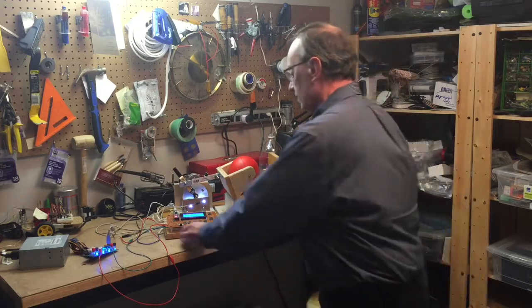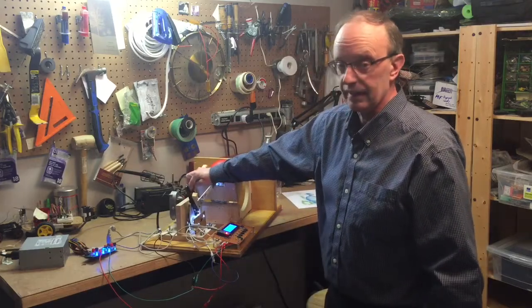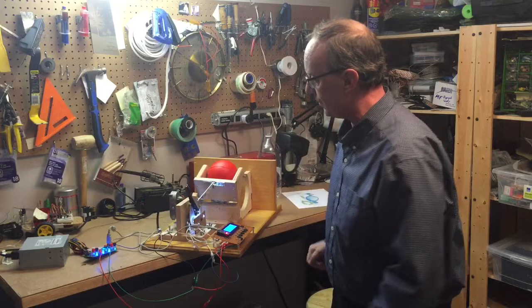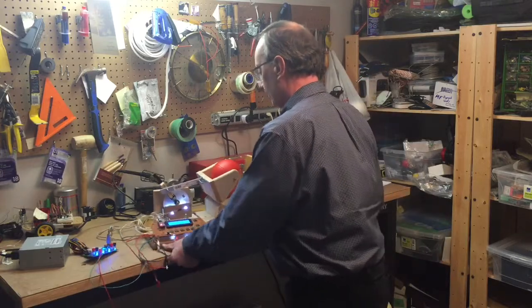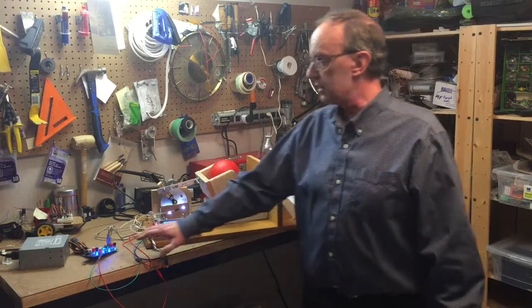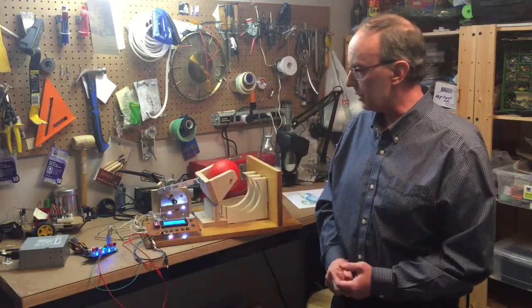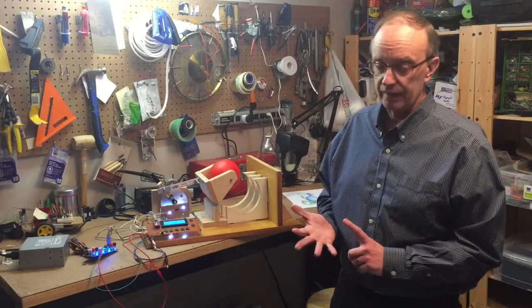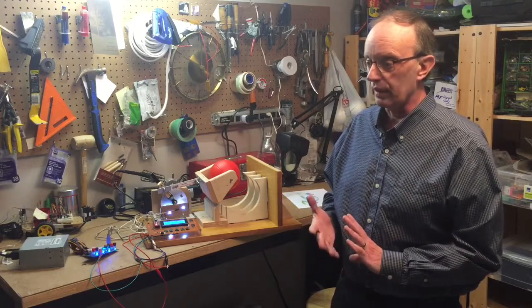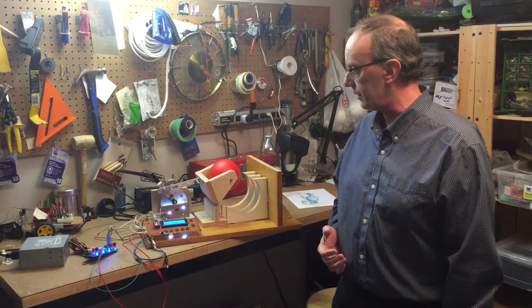The main part of this ventilator is the windshield wiper motor, which can be found pretty well free in any junkyard or purchased very inexpensively, and it uses an Arduino with a display. It uses an old power supply from a computer, which runs on 12 volts, which means that this ventilator can also be used with a car battery or with a wall-mounted power supply. It's very affordable and very versatile.